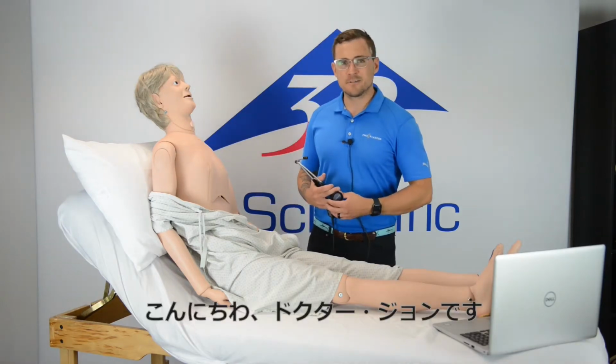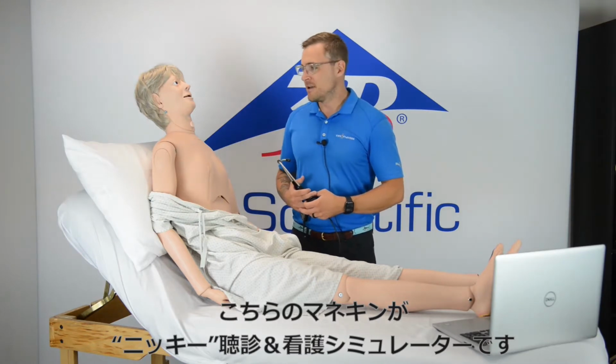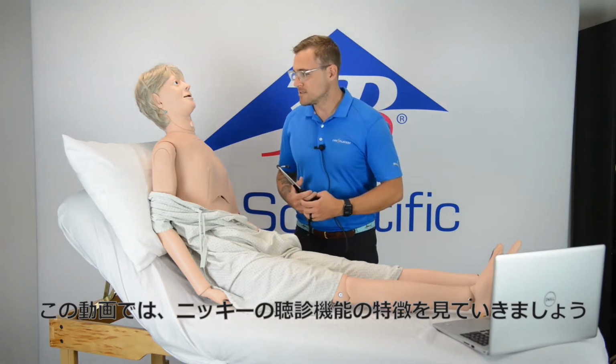Hey guys, Dr. John Wojciechowski here with Nikki, the nursing mannequin with auscultation. I just wanted to go over a few benefits briefly of the auscultation capabilities.